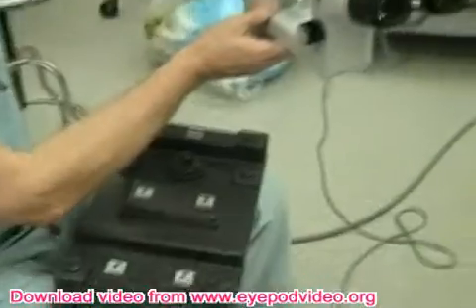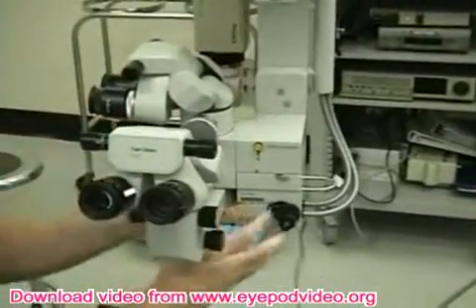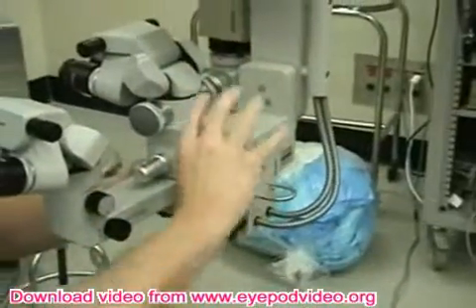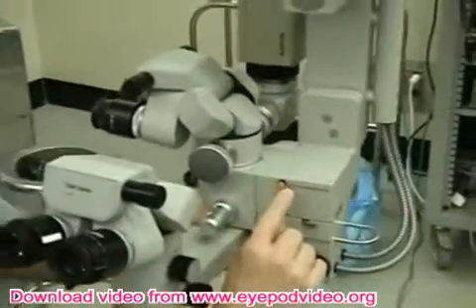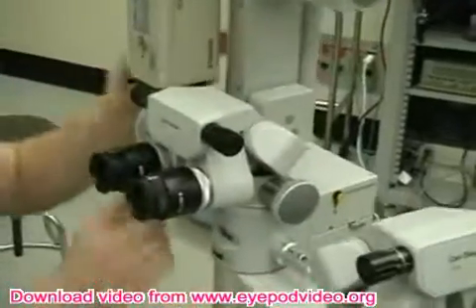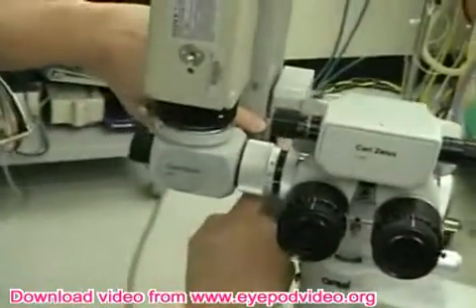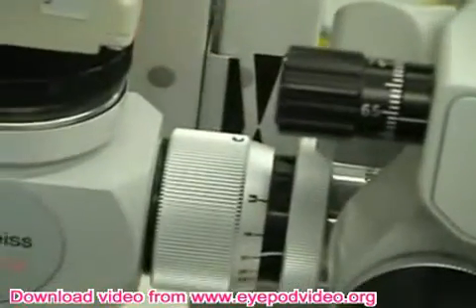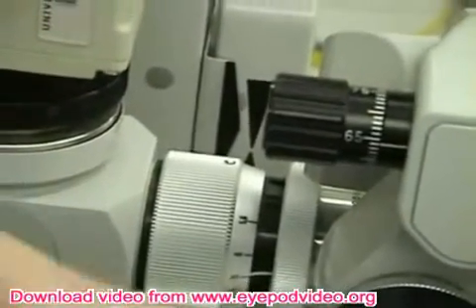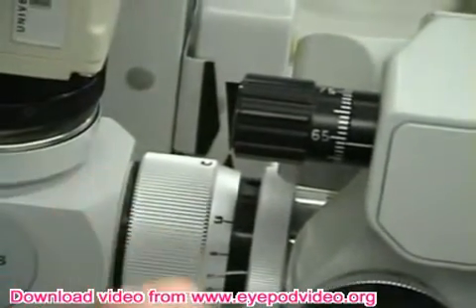When we look over here on the microscope, there's a device here that moves the whole microscope up and down. When we re-centered it, now it's at the center — you can barely see right through there, there's a little centering thing. When I push the focus up or down, that little thing just moved up, so the microscope's moving down. I push the other way, focus goes the other way.